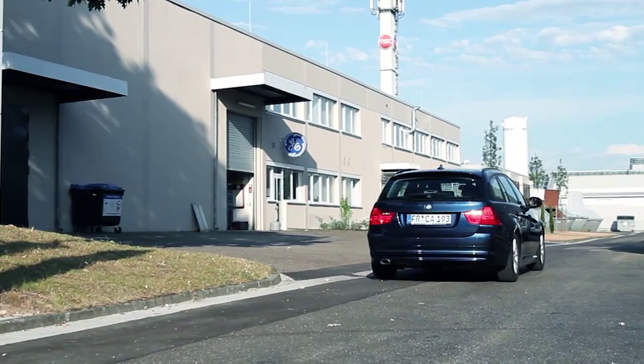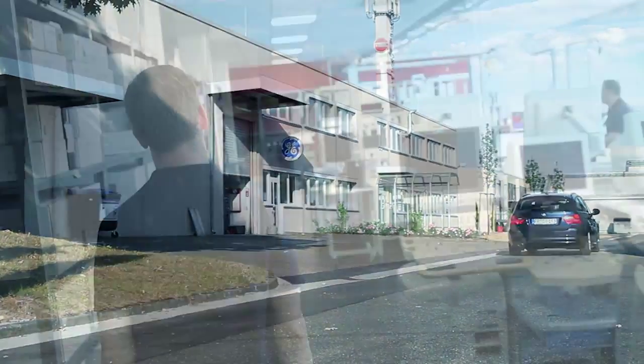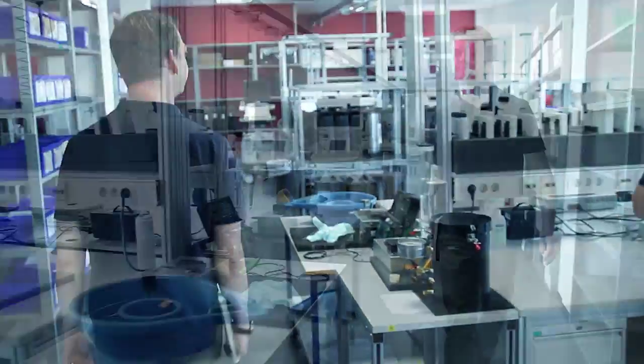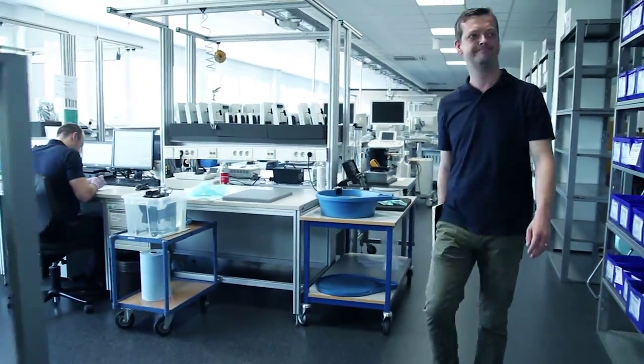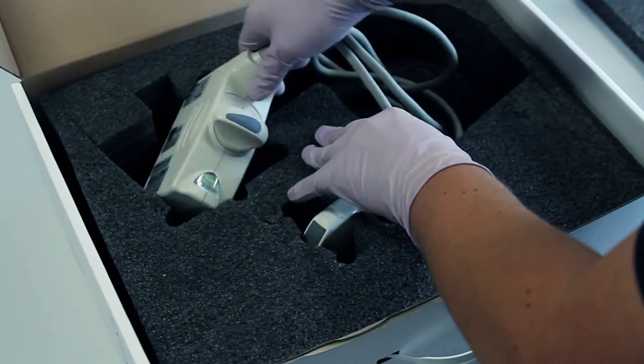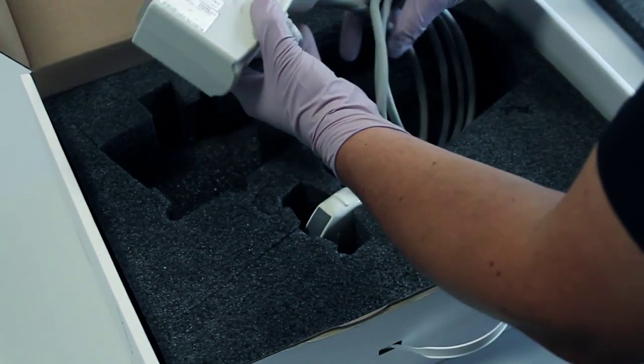we support your ultrasound clinical and maintenance activities by providing comprehensive multi-brand probe management solutions, helping you optimize your clinical performance and protect your investment in the most complex and expensive piece of your ultrasound imaging chain.